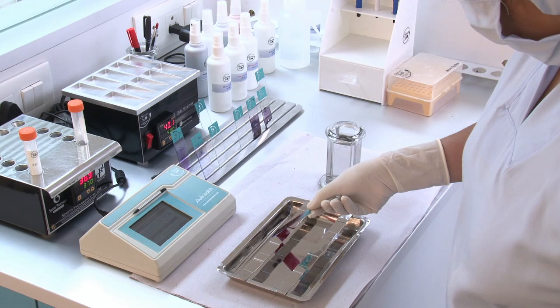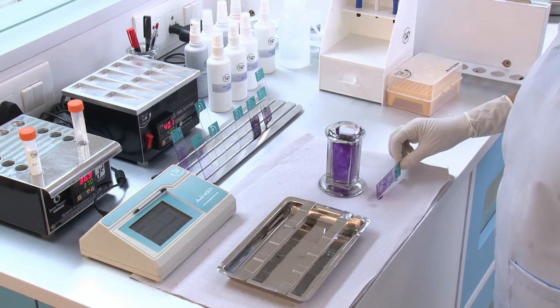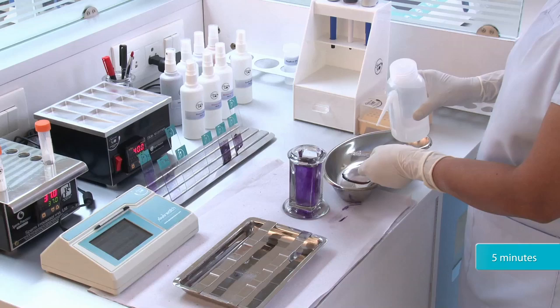Drain off the stain. Dip the slide in distilled water and keep it for 30 seconds. Drain off the distilled water. Keep the slide horizontally on a staining tray. Cover the smear with acid ethanol, then cover the smear with 50% ethanol and keep it for 30 seconds. Hold the smear under running water for 5 minutes.